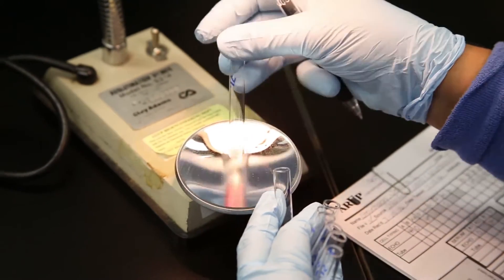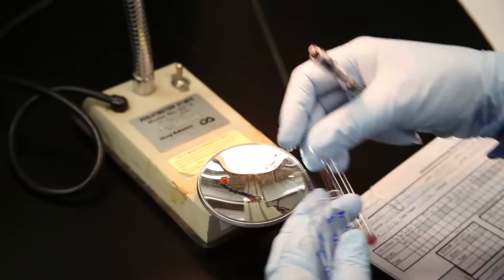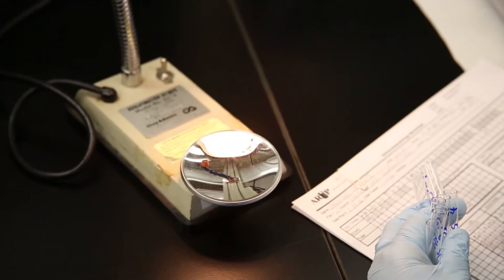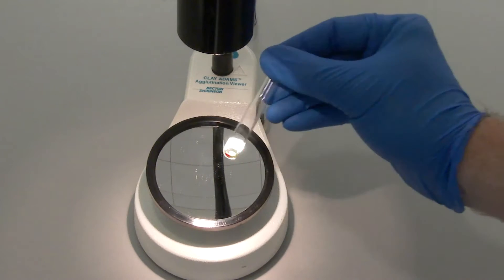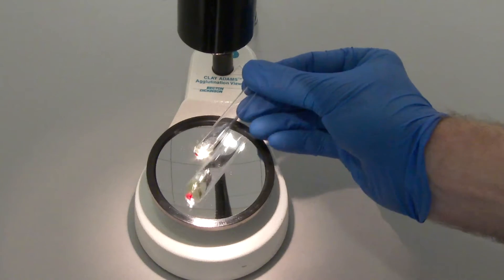This instructional video will demonstrate the basic principles of proper test tube reading techniques. Tubes should always be read with the assistance of the light reader.